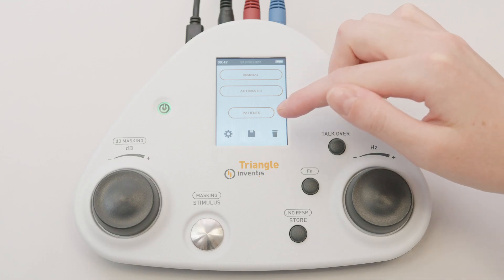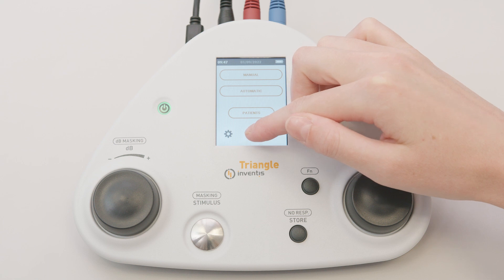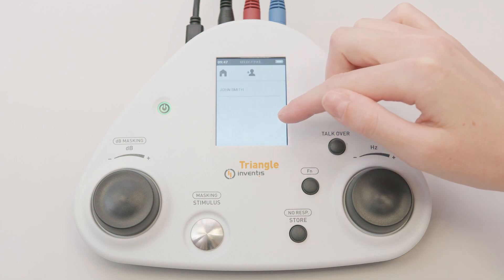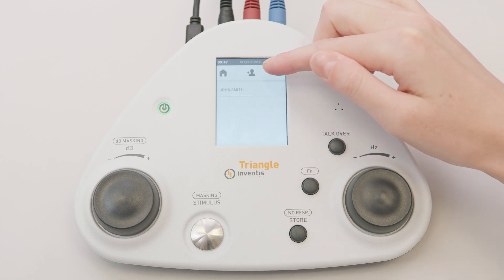Press the save icon to associate the exam with an existing patient in the list, or with a new patient by clicking the new icon at the top of the screen.